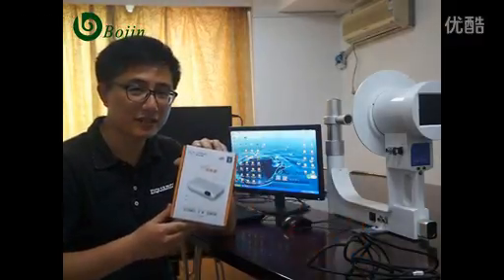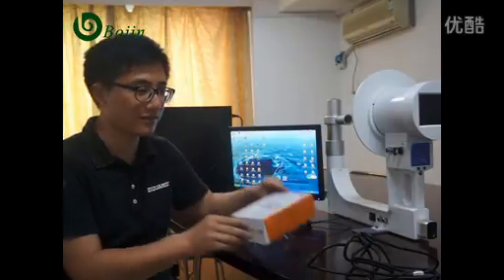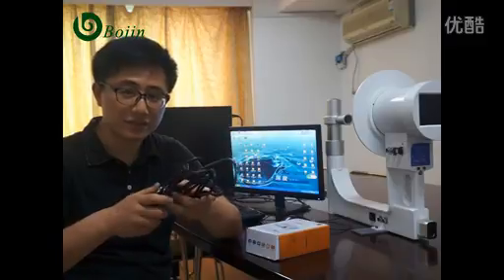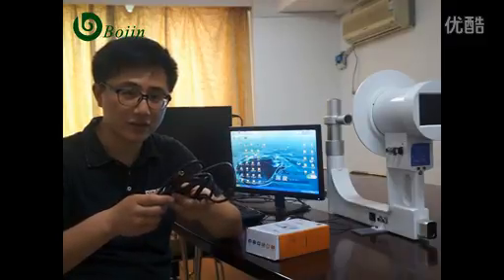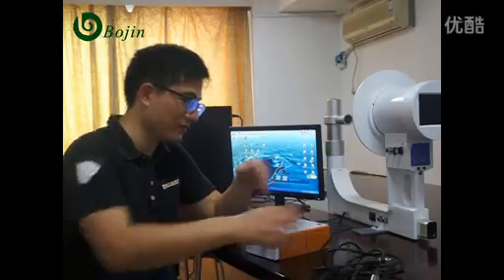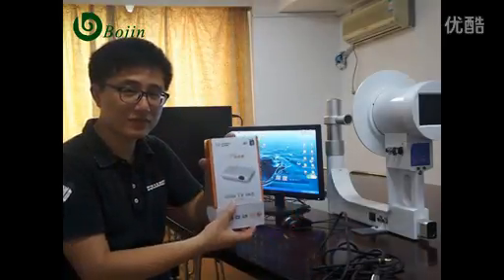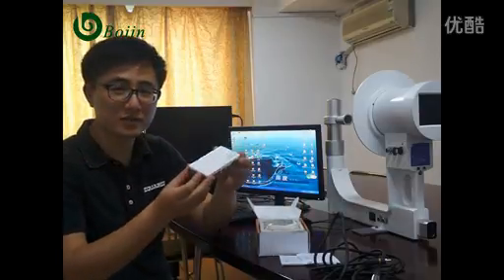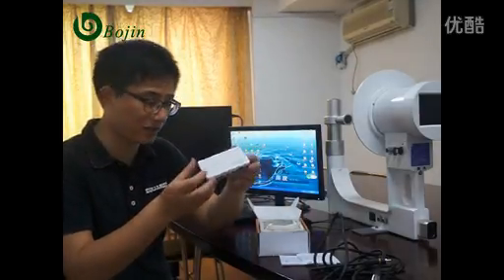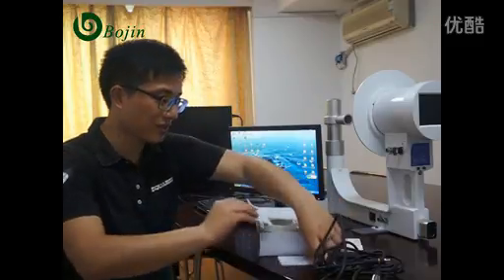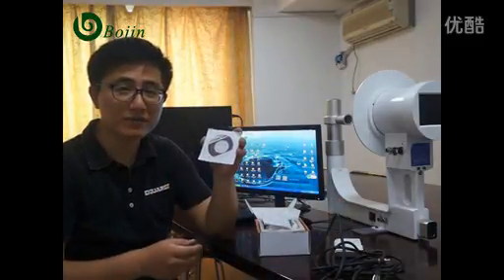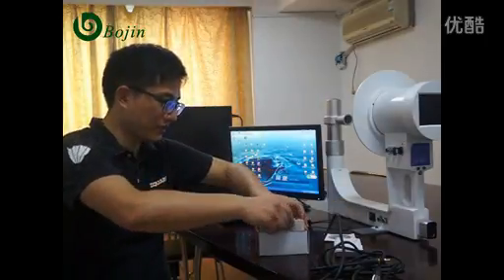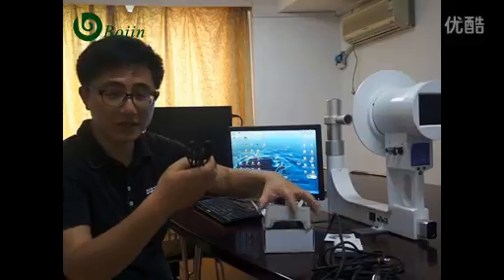Please check the USB TV box, and using the audio-out video line, open the box. Pick out the USB box, pick out the software CD, and pick out the USB connecting line.